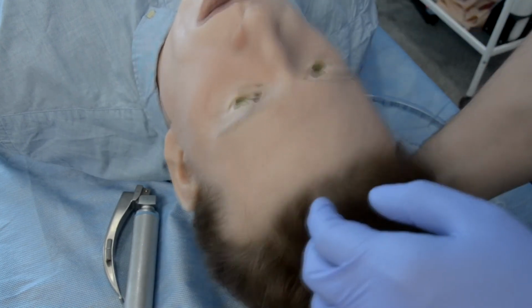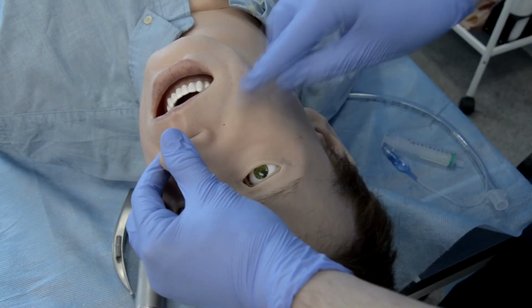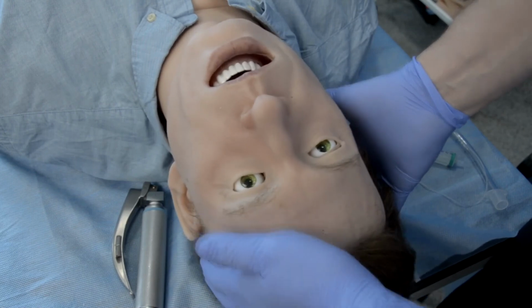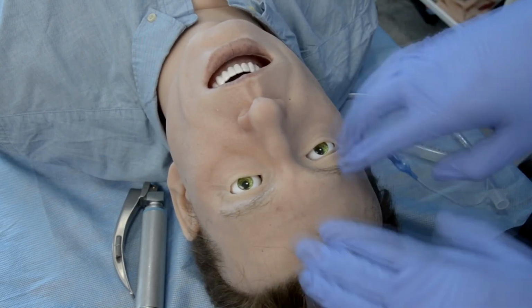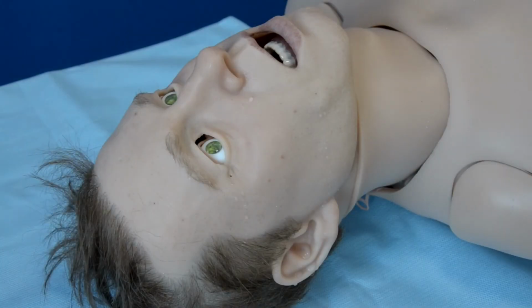If we look closely here, we can see the little holes where the water for secretion would be coming from, and as you can see, they are very small, and when the water is coming through, it doesn't really look artificial. Leo has two tanks inside, one for secretion and one for fake blood.